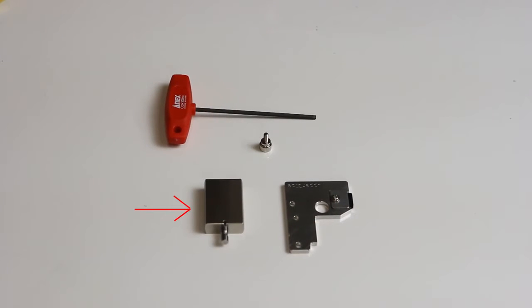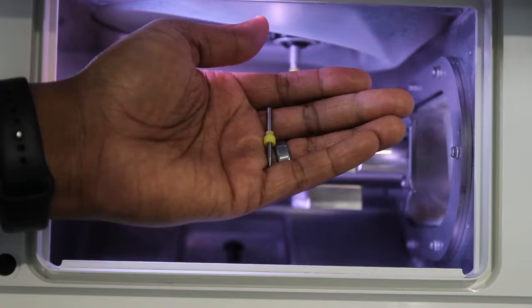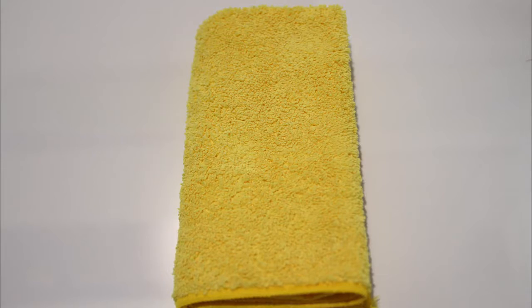you will need the rotary axis correction jig, ATC magazine correction jig and screw, hexagonal screwdriver, cloth for care, detection pin, and a dry cloth.